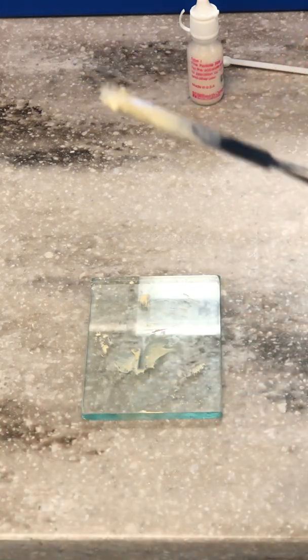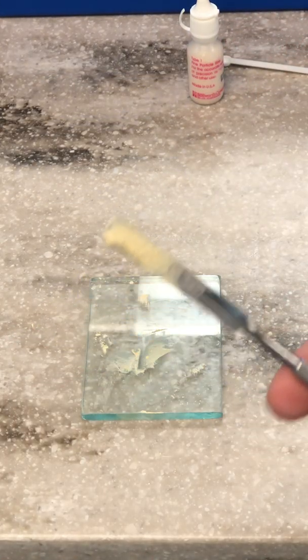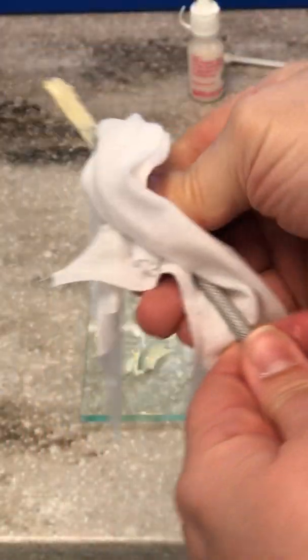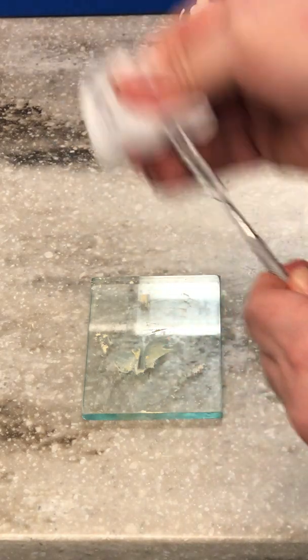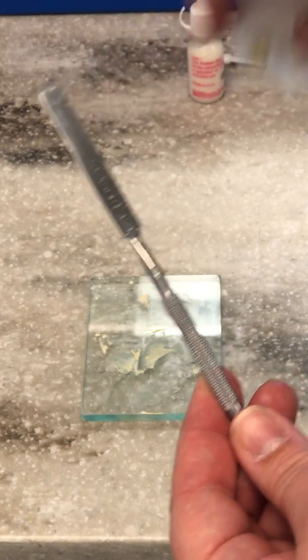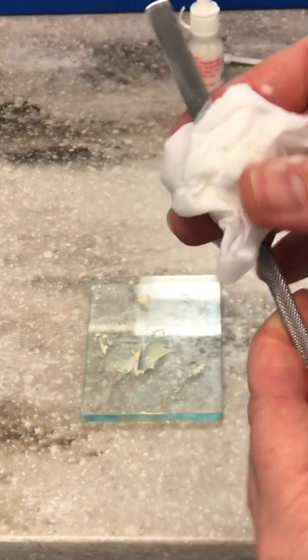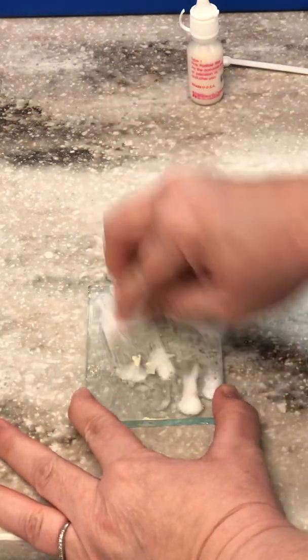I'm going to scoop it up and this is when you're going to add it to your crown to be cemented. Make sure you wipe off the cement spatula so that it stays nice and shiny. If you get any cement hard or dry on there and have to scrape it off, you're going to take the finish off — so don't do that. Make sure while it's still wet, you take the cement off.